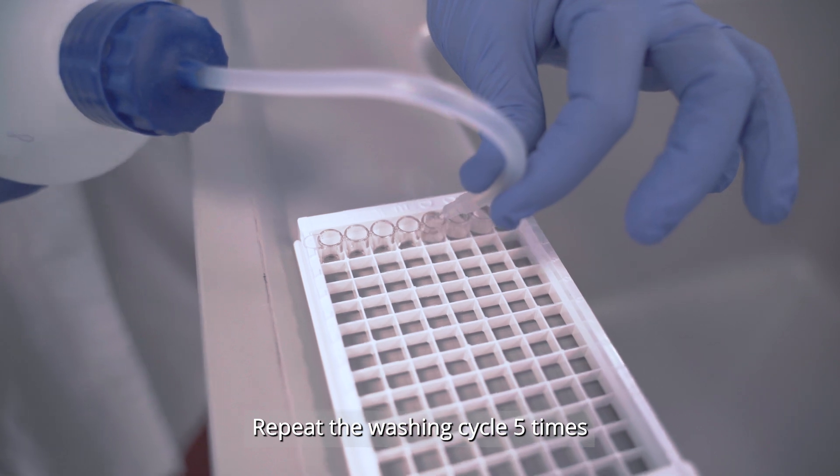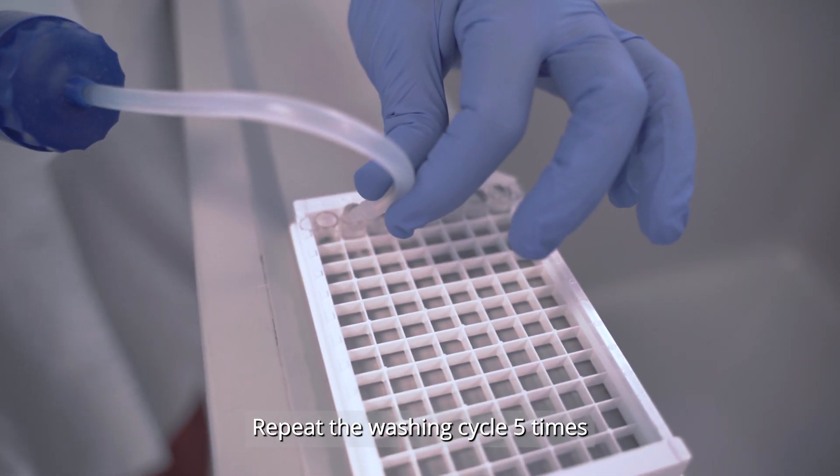After the incubation, empty the wells into a container with sodium hydroxide solution and wash five times.